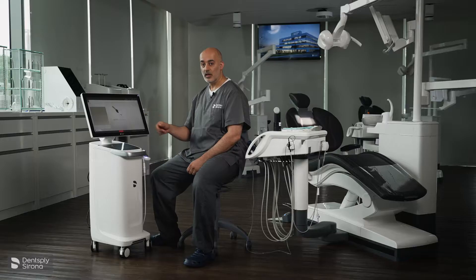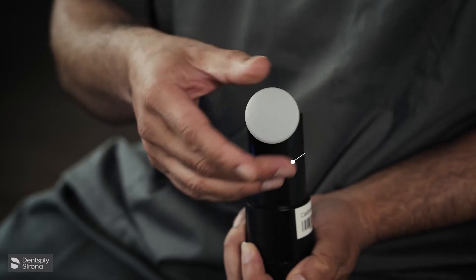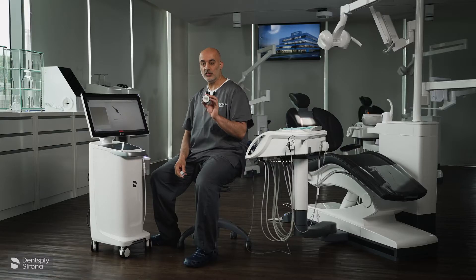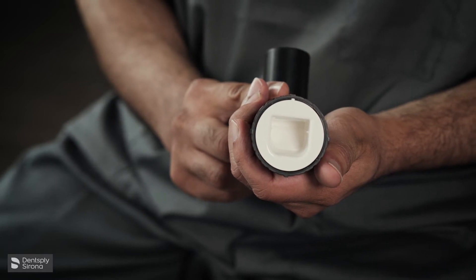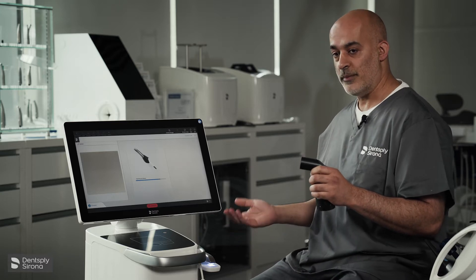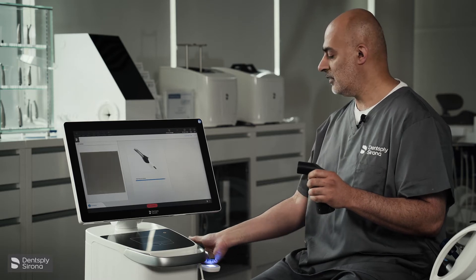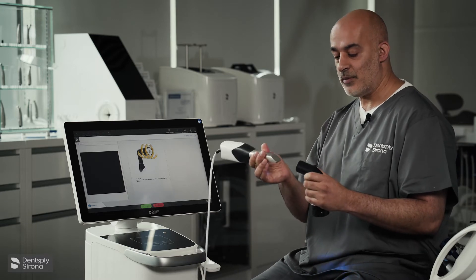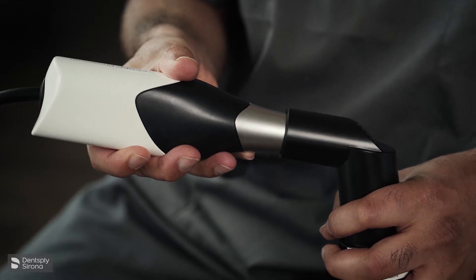The camera is now warming up. While that's happening, we're going to move to our calibration set. This has a white cap on and it's a hollow entrance. You'll notice at the bottom there's a white solid shape which is not hollow. To remove the camera, remember to be careful — hand under the part of the camera head and grab. You place the camera head within the hollow entrance until it is pushed in, and you support the camera.